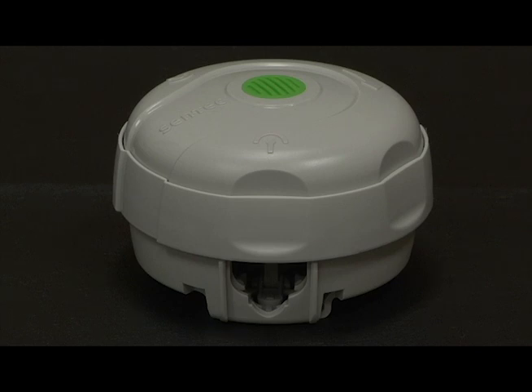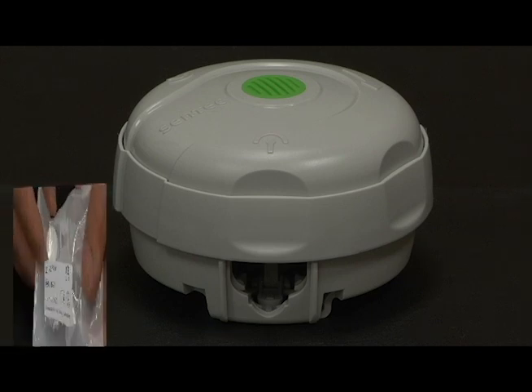Prior to reuse, the membrane changer must be reloaded with a new V-sign membrane changer insert.